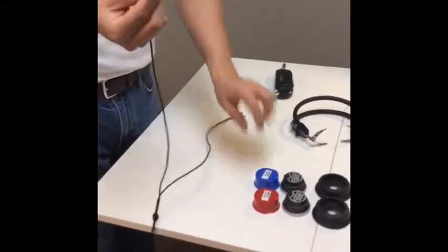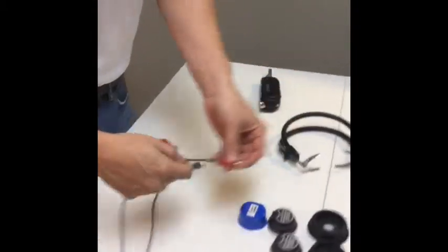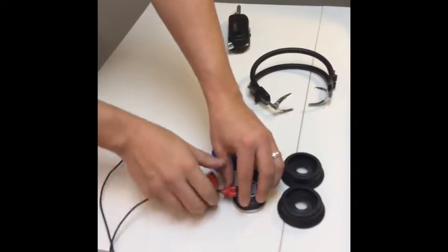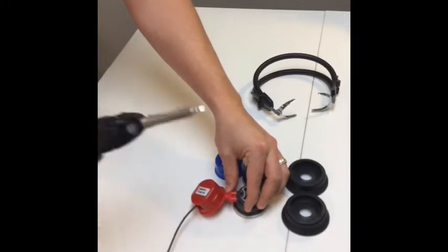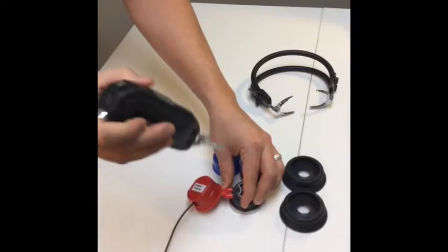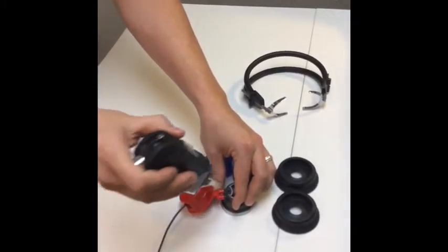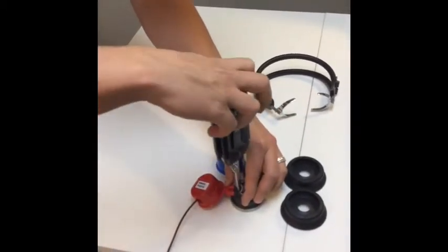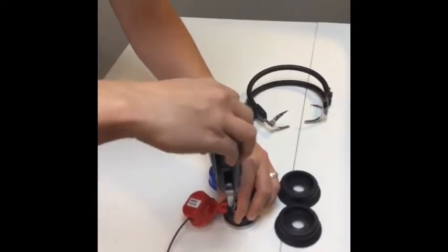I'm going to go for my right first. I'll take my right cap, put the cord through there, and just slide that right into the opening. Take my flathead and screw these down. You don't want to screw these down really tight — just make them snug. If you go too tight, these screws will break and it's extremely hard to take them out after they've broken. So just two to three turns to tighten, same as we did to loosen.